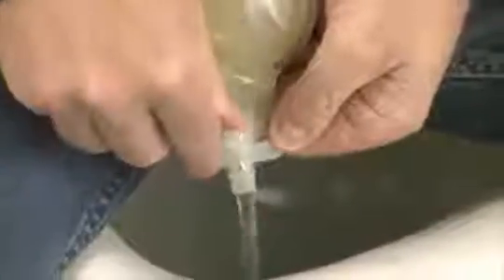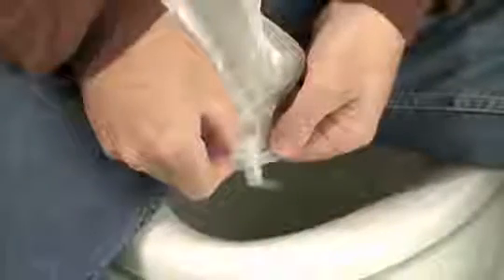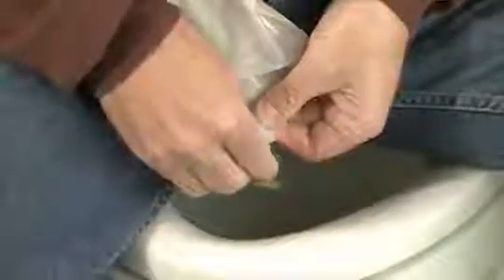The drain valve is open when the gold teardrop indicator is facing away from your body. When the pouch is empty, close the valve by rotating the valve backward a half turn. If you are using a valve cap, replace it now.